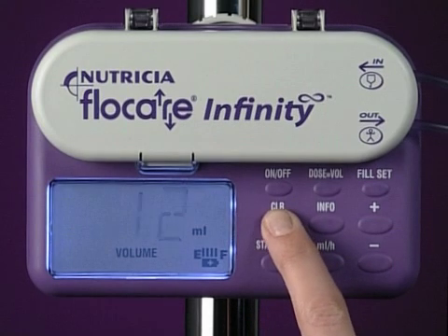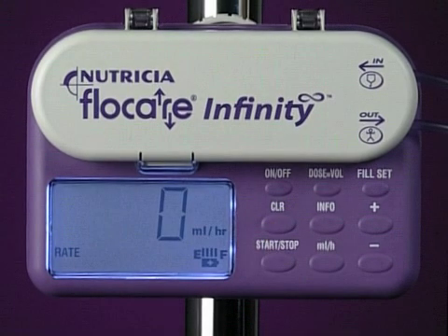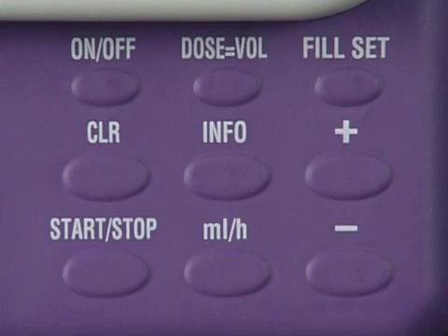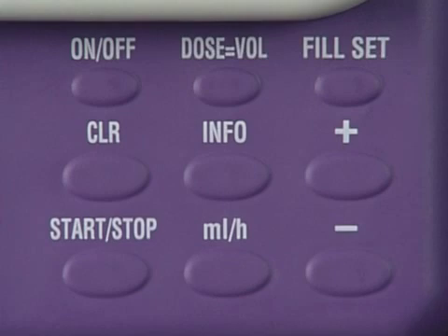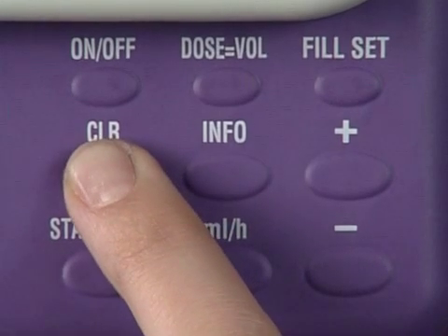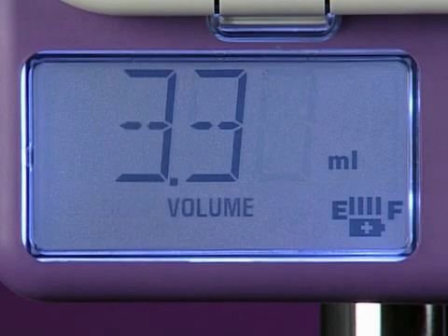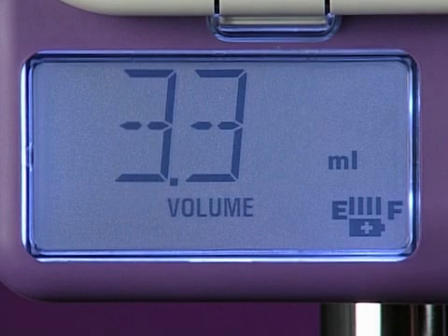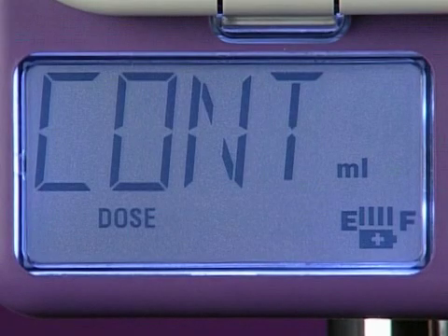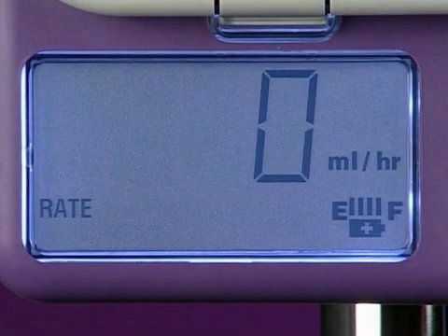You can also clear the total volume delivered simply by pressing the clear key to set it to zero. Pressing and holding the CLR key for two seconds will reset all the pump parameters, including dose, total volume delivered and flow rate, to their default values of C-O-N-T, zero and zero milliliters per hour.